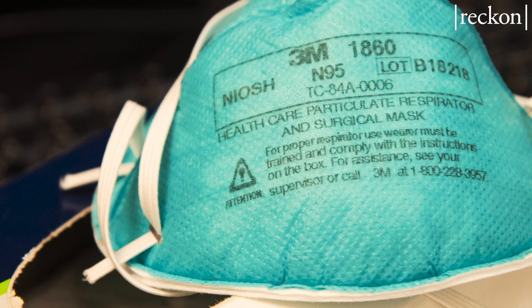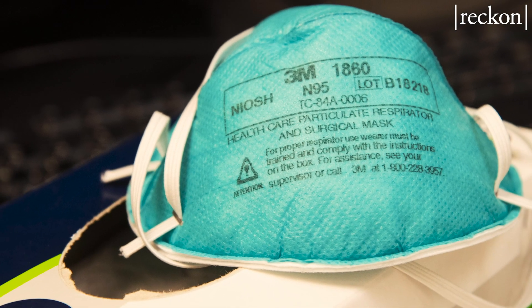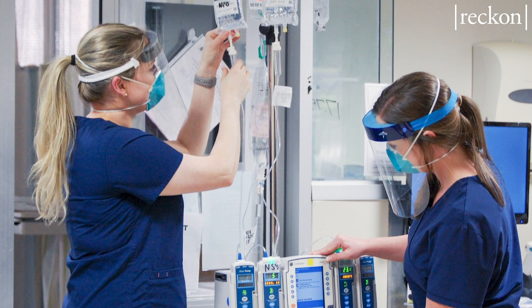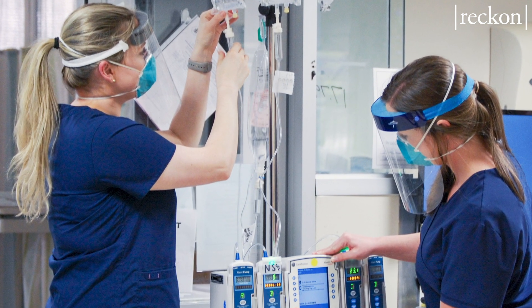I didn't realize just how much they did not like the current masks they were using. They're uncomfortable. They also weren't designed to be reused. If you get something wet on them or any kind of different things, these things disintegrate and there was no way of preserving them.